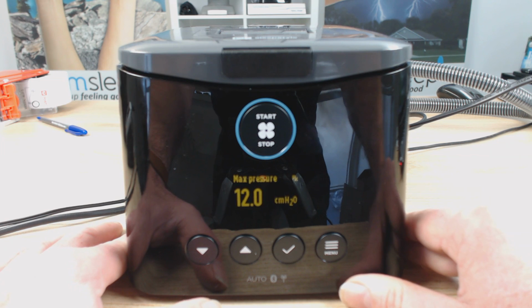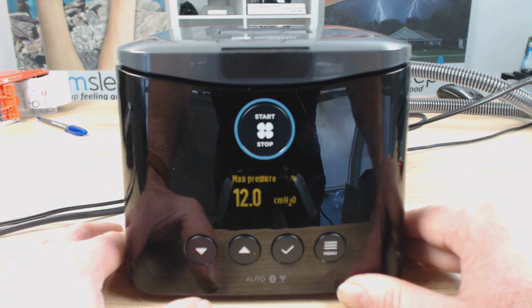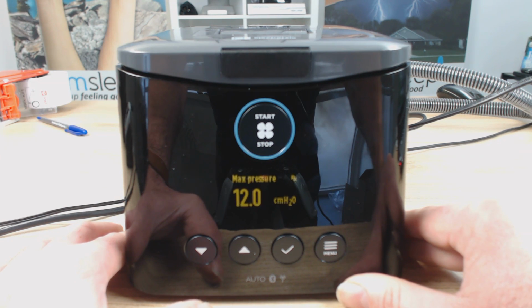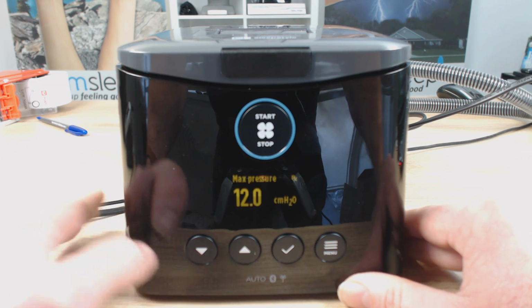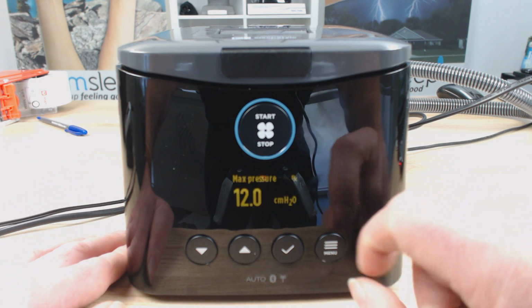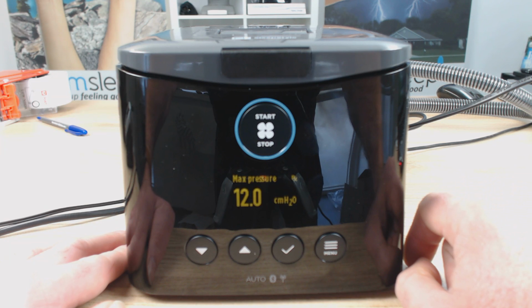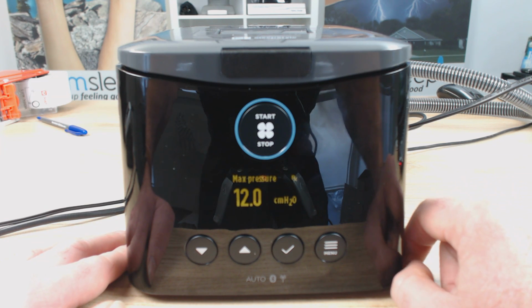Another thing you can do with this machine now, which is fantastic, is because you have the SleepStyle app that you can connect to your phone, you can instantly see the apnea-hypopnea index every day. As long as your apnea-hypopnea index is around 5 or below, you're in good, safe territory. So you can play around with this max pressure level, and as long as you're under that limit, that sort of 5 level, then you're kicking goals, all right?